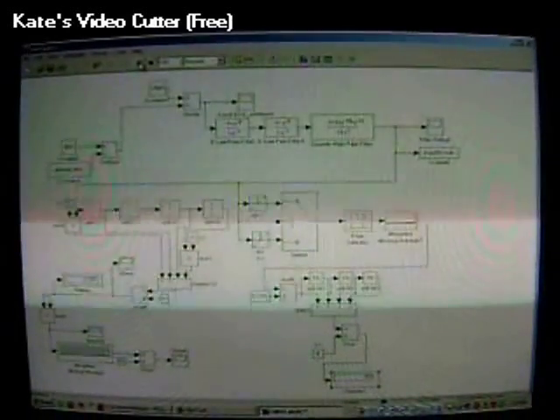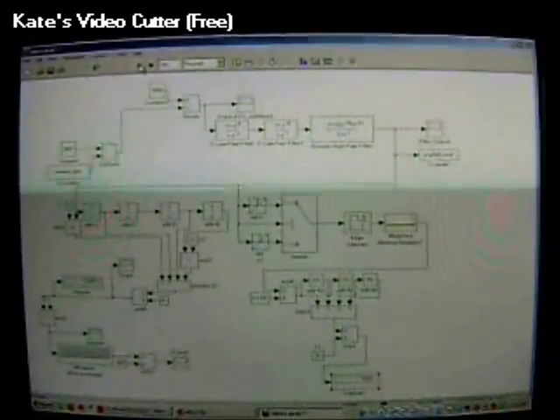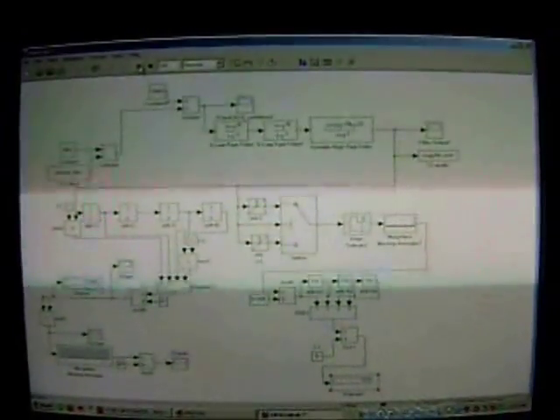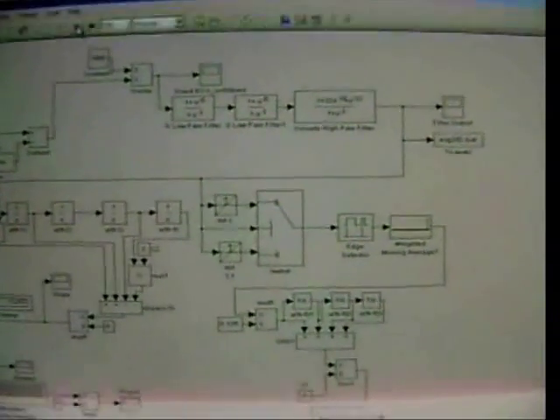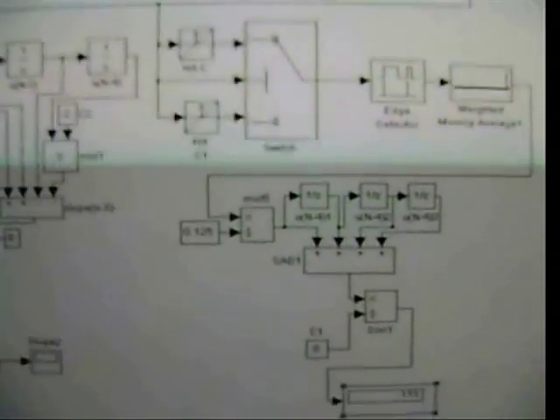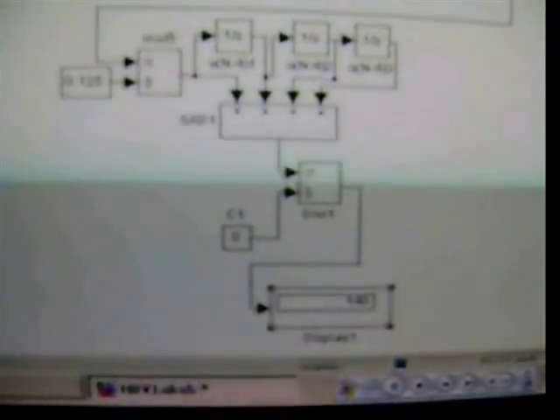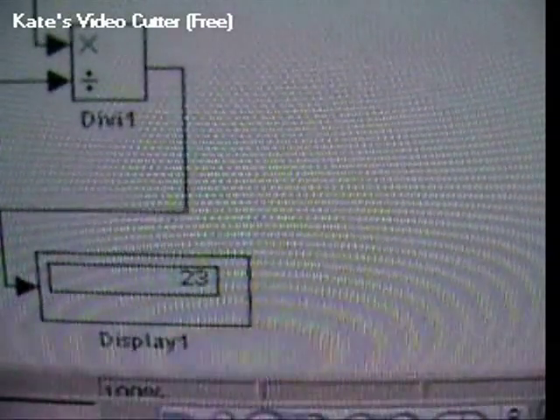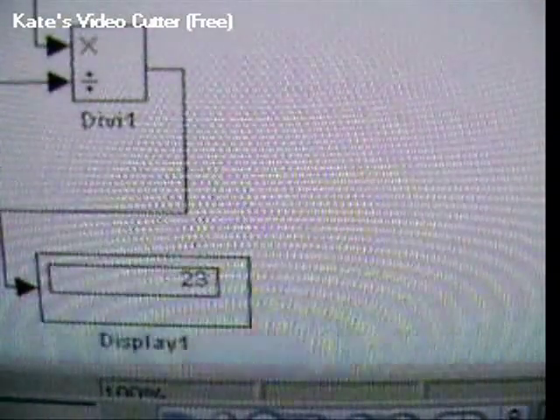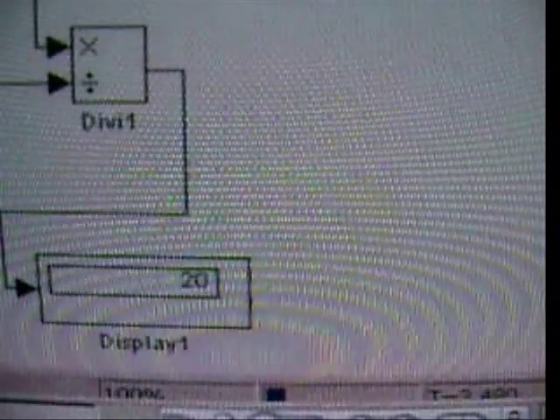The figure shows the Simulink model of the algorithm developed. Here we can see all steps applied for generating heart rate per minute count. Display options denote heart rate as an average of 12 second ECG data.